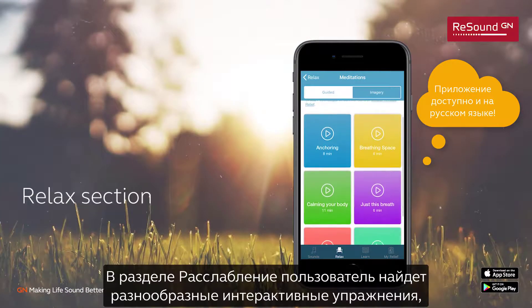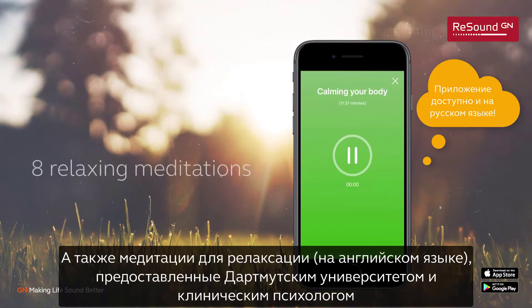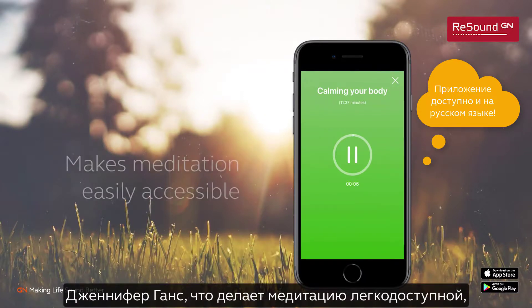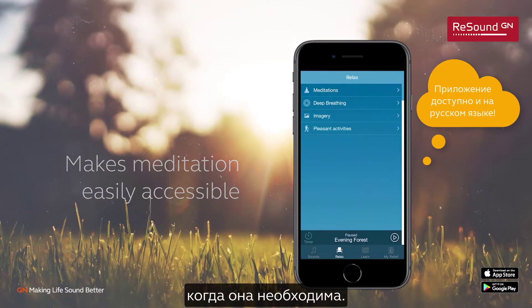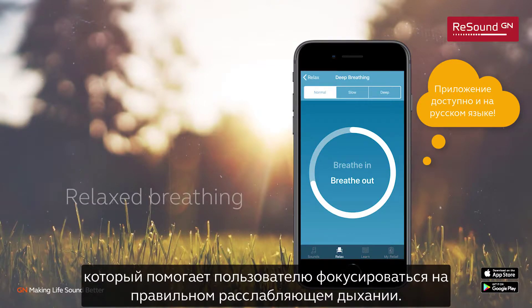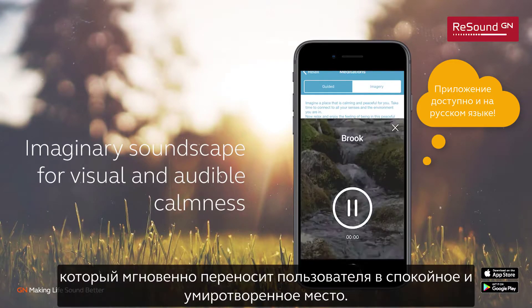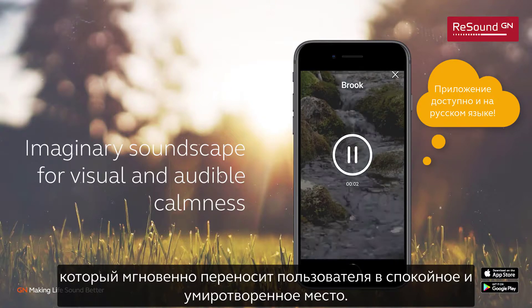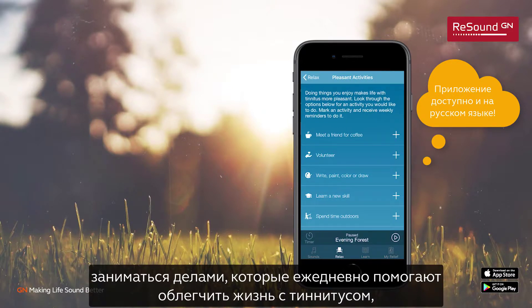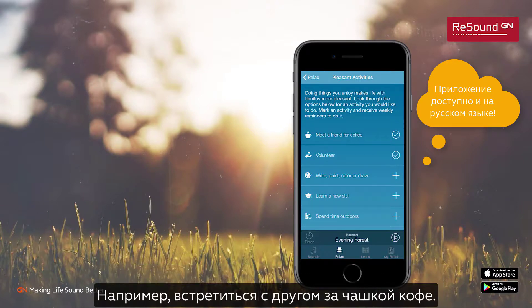In the Relax section, a user will find a variety of interactive exercises to help manage their tinnitus. Eight relaxing meditations by Dartmouth University and clinical psychologist Dr. Jennifer Ganz make meditation easily accessible when there's a need. There's also a deep breathing tool, which helps the user focus in on the pulse of a calm and relaxing breathing pattern. In addition, one can find an imaginary soundscape that transcends the user to a scenery of visual and audible calmness instantly. Lastly, pleasant activities remind the user to engage in activities to help ease living with tinnitus on a day-to-day basis, such as going for a cup of coffee with a friend.